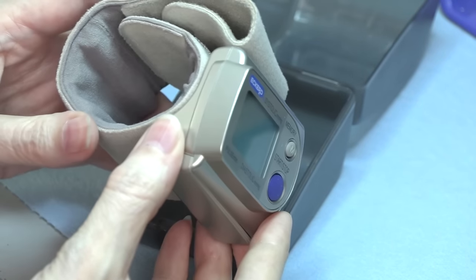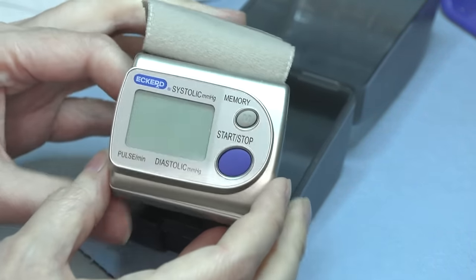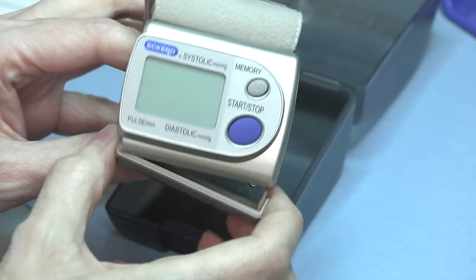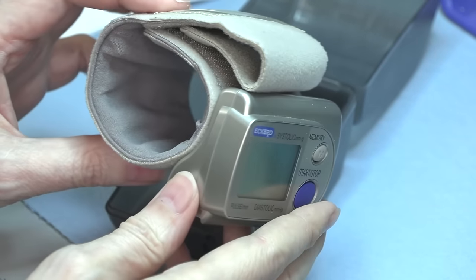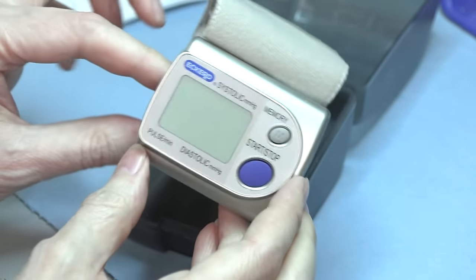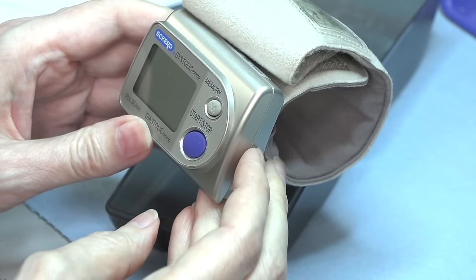It started putting out some crazy numbers that were just not believable. I think honestly these things have a definite lifespan, and this is probably at least a decade old, so it's probably like five years past its lifespan.